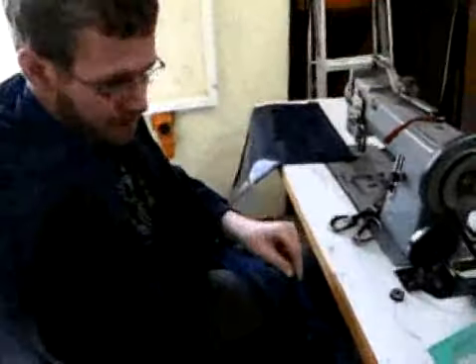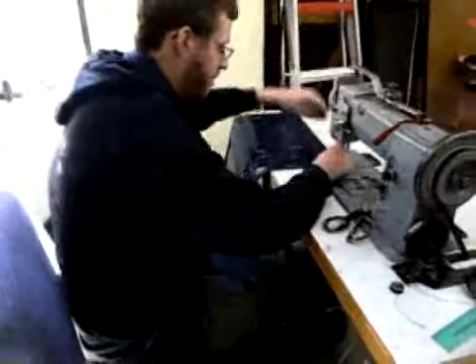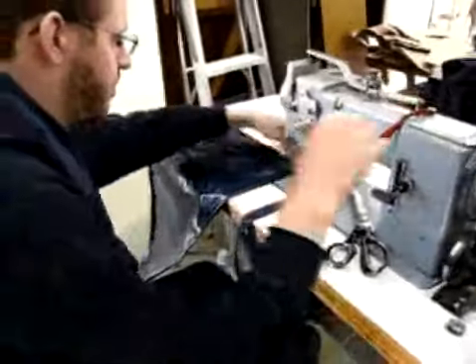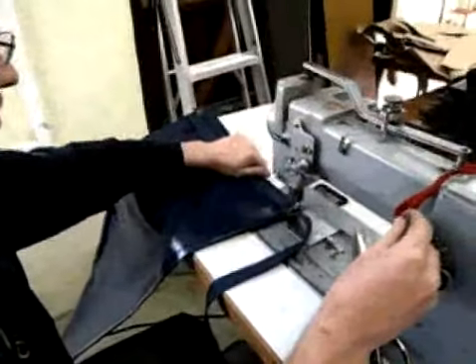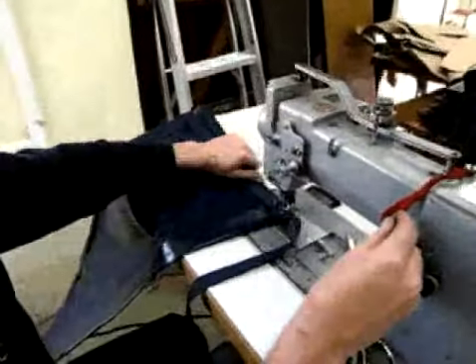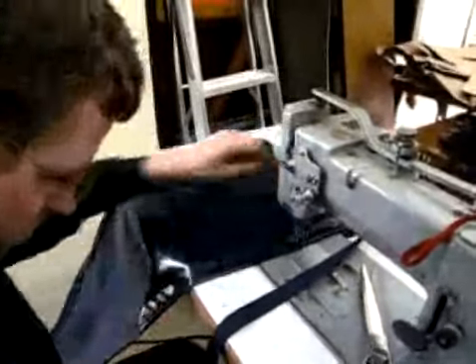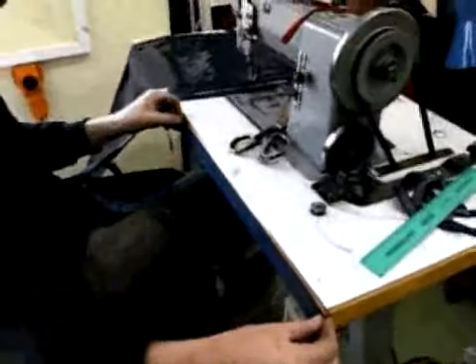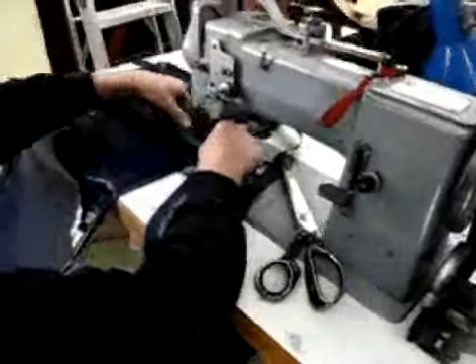The stretcher fabric is first hemmed at 5cm on each side and each end to give an overall dimension of 40cm by 190cm. Then sew the 6 shorter head end webbing pieces and 9 longer foot end webbing pieces into the stretcher at the locations marked previously. Use a walking foot sewing machine. Each side of the webbing should have 5 runs on the sewing machine before continuing.